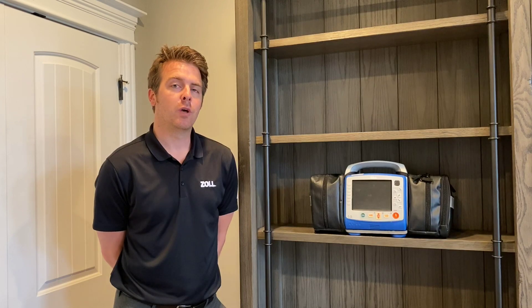Hi everybody, this is Kyle Sears from Zoll Medical. Today's Zoll X-Series Tips and Tricks video is going to focus on the management of data coming out of the Zoll X-Series. We're going to take a look at how to get the information from the cardiac monitor into Zoll's QA software platform, Zoll Case Review, a byproduct of which will allow you to integrate into any of the major ePCR vendors as well, so that your report is filled out not only accurately but in a more timely fashion. So let's take a look.